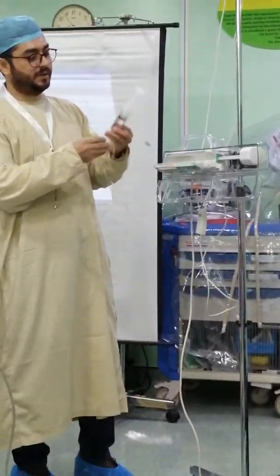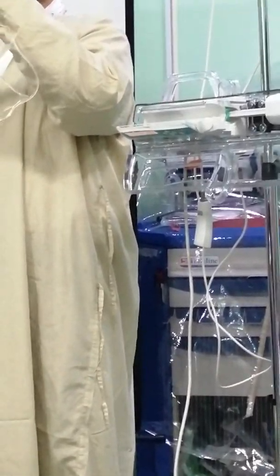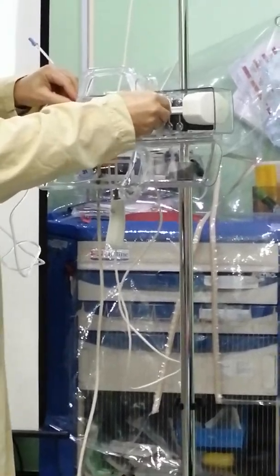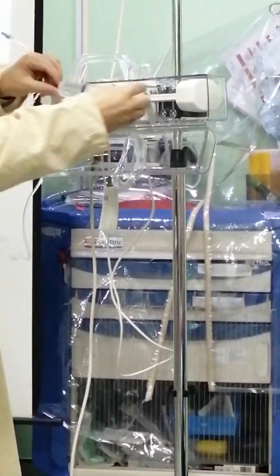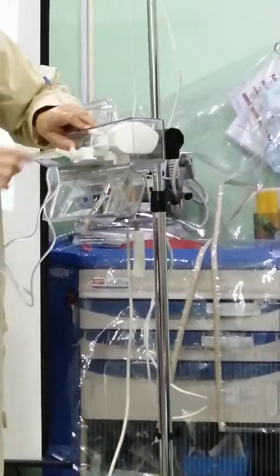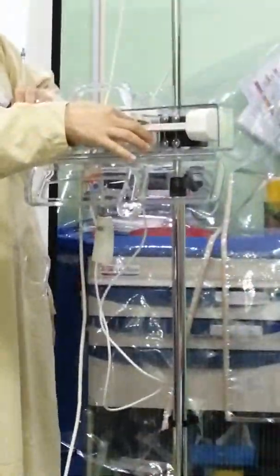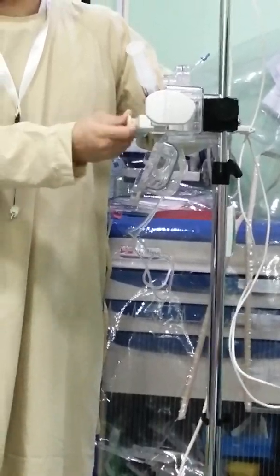After priming, you put the syringe into the pump. To do that, you have to make sure the long wings are facing downward and the short wings are back and forth. So the syringe goes into the pump and up — not the other way. For the long wings, you go in at an angle and then twist at a certain point, because going in straight from the start is hard with a larger syringe. You go in and then twist it — ending with the long wings down. You have to have this wing between the green part and the body of the pump.